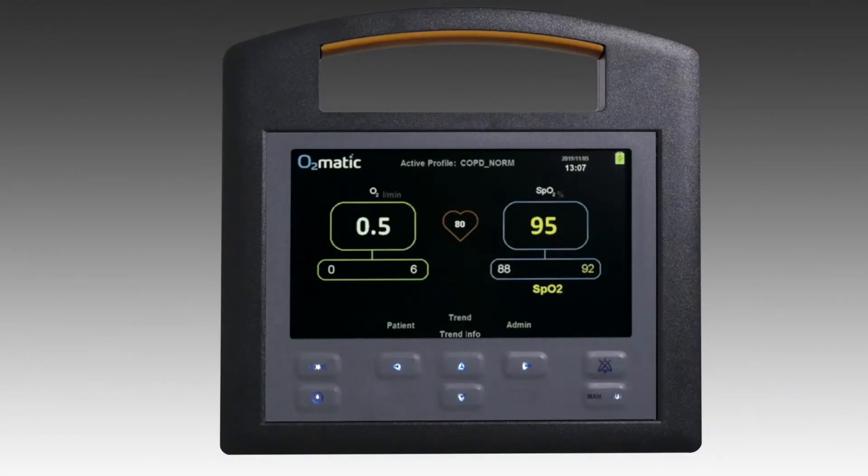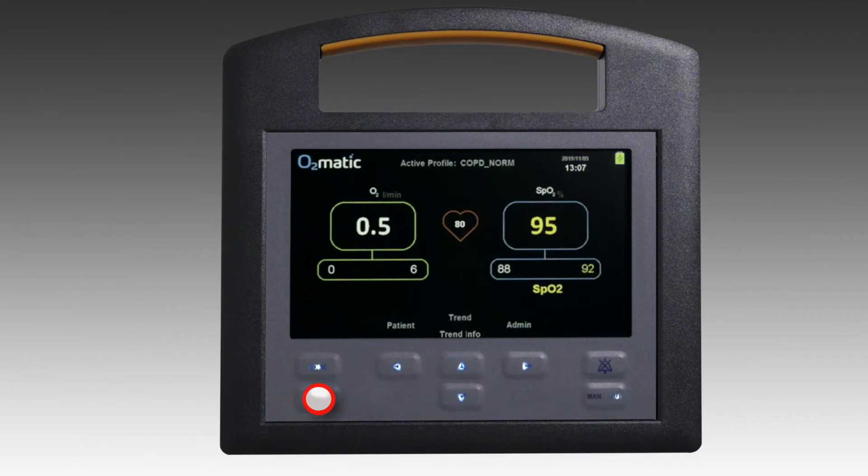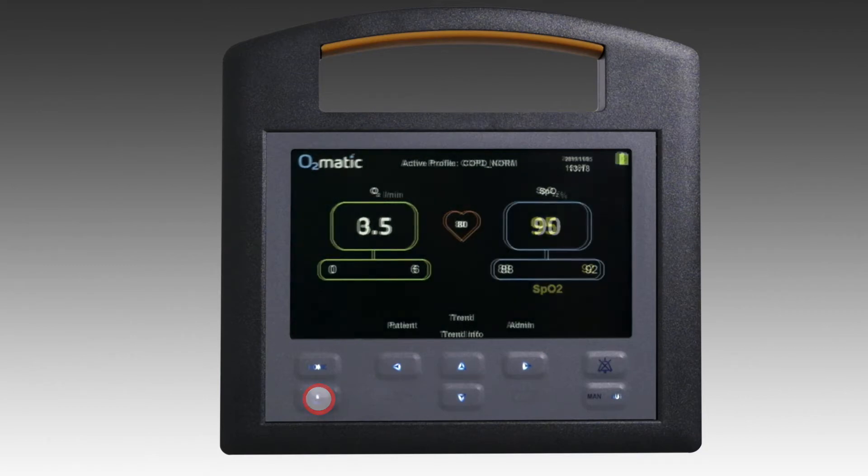To start the O2Matic, press and hold the power button on the front of the unit.